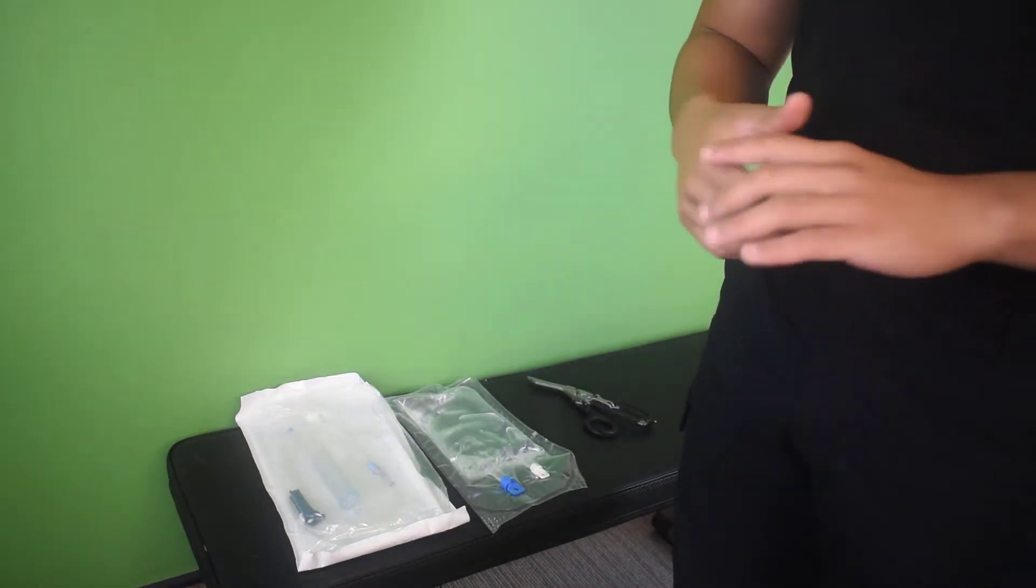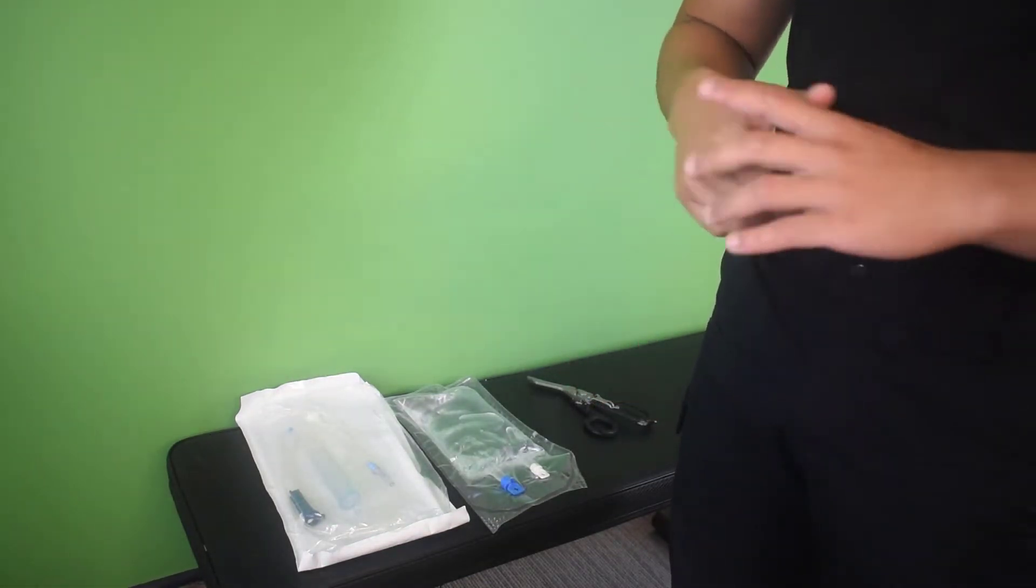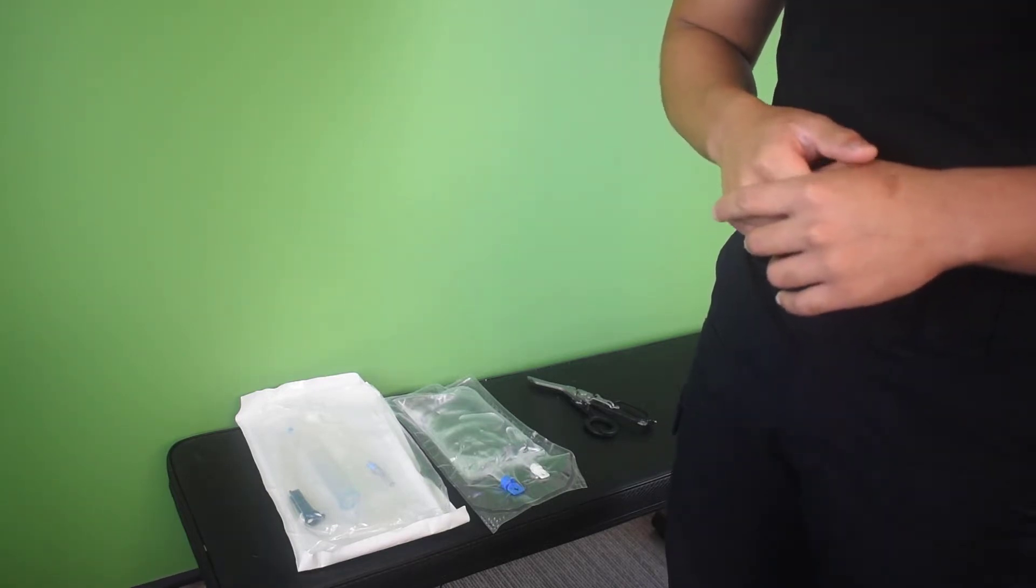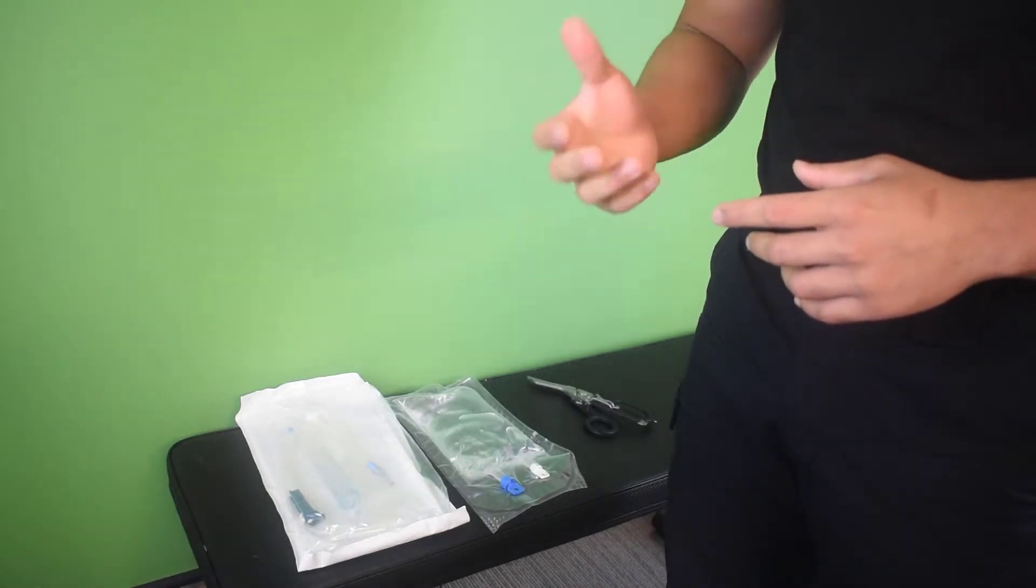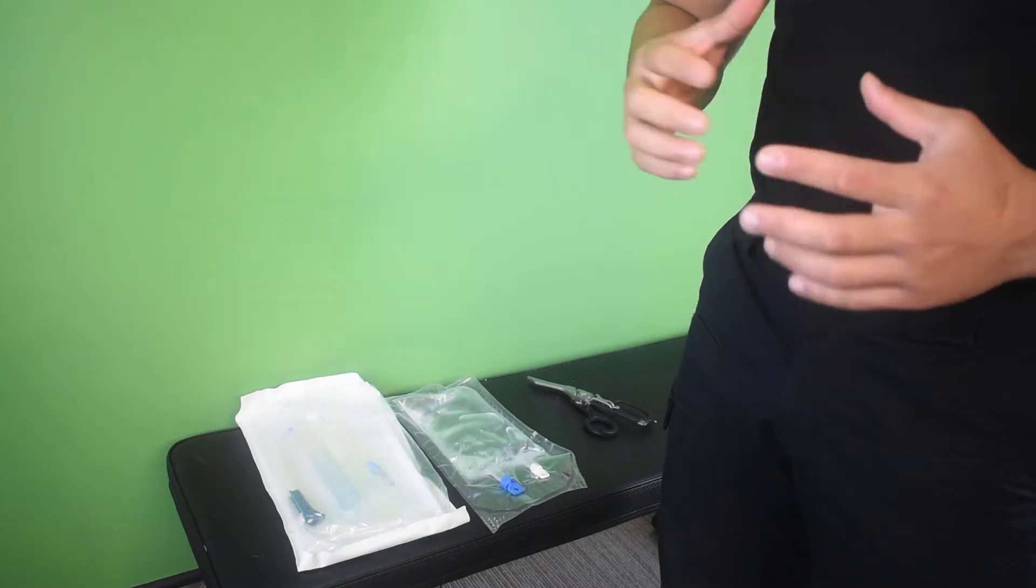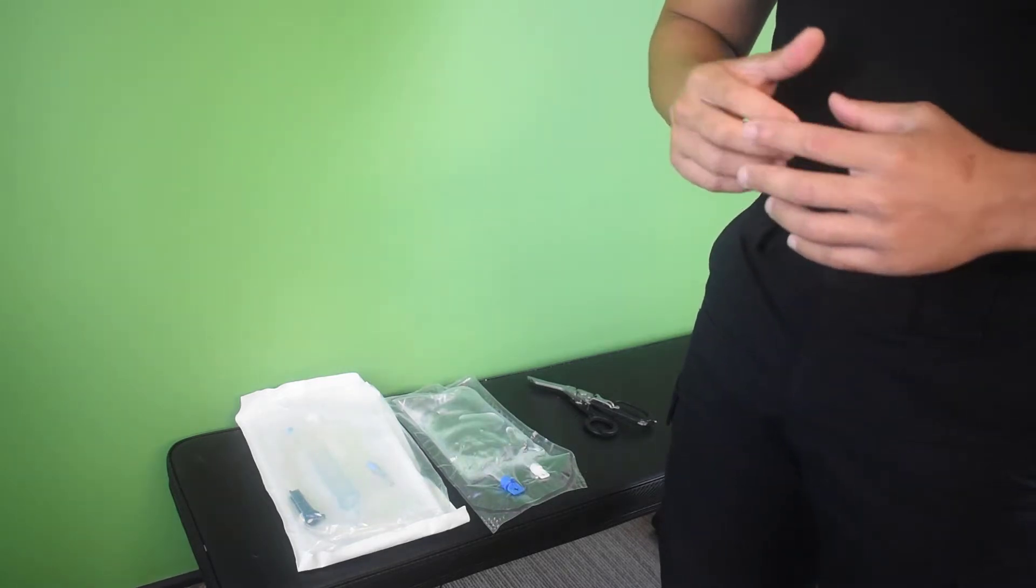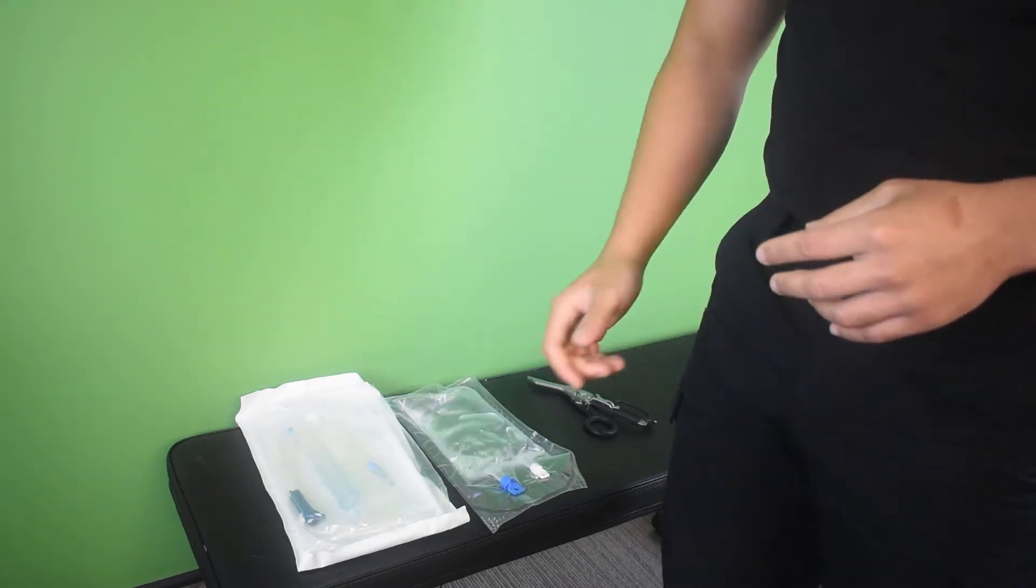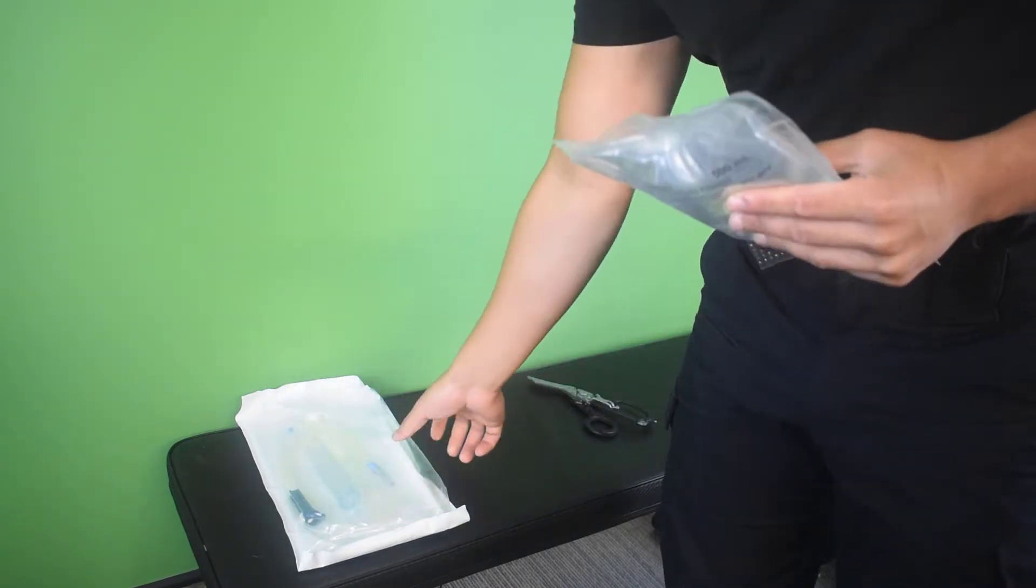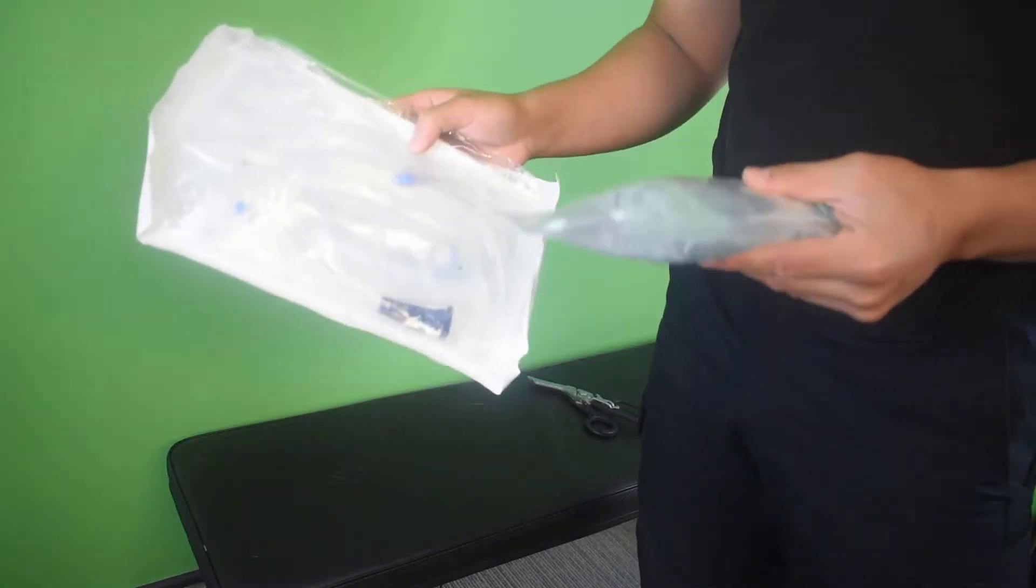Today I'm going to show you how to set and prime a fluid bag, whether that's giving it for dehydration, for fluid resuscitation because the patient's blood pressure is quite low, for burns, and all the reasons you may need to do it in the pre-hospital setting. The most important thing to do first is to ensure you get the right medication and your equipment set up before you even try and begin priming.